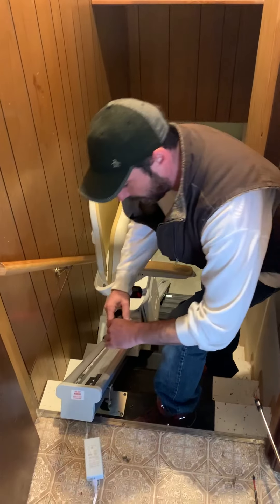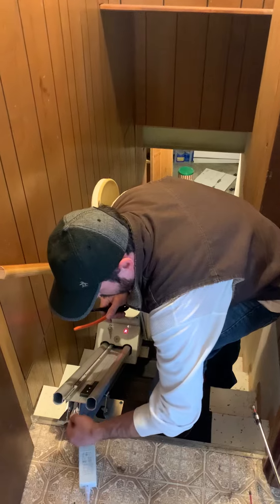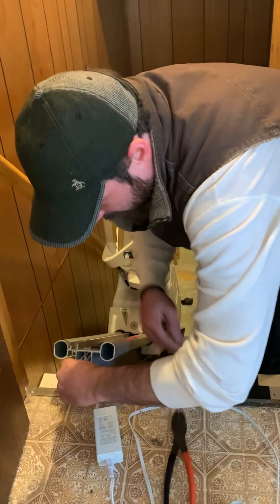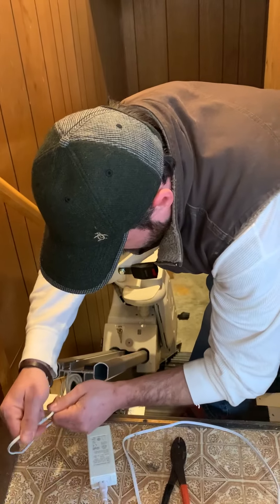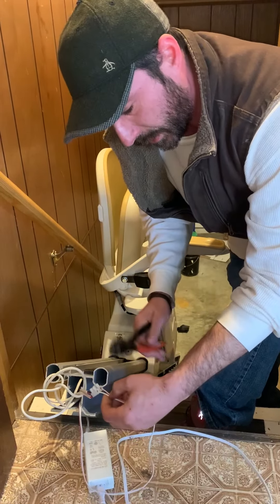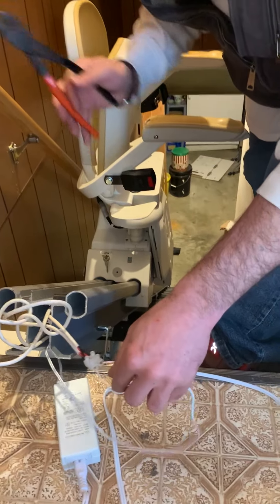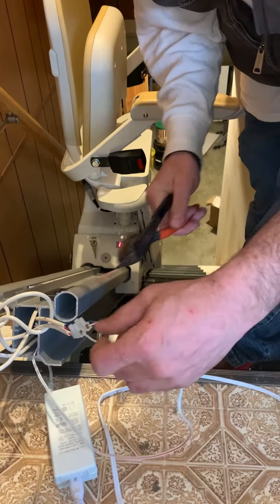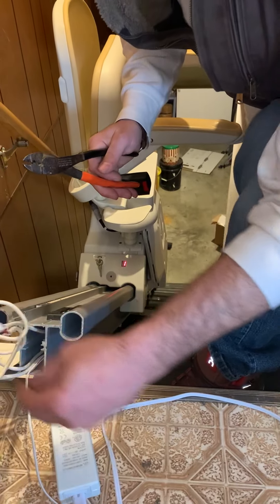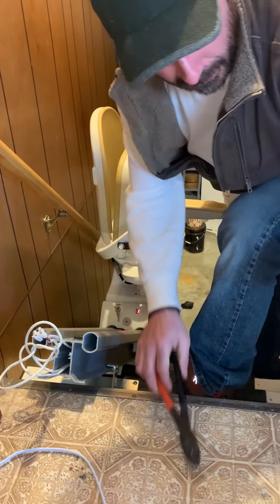This cover pops right off. There's a couple wires. You want to unplug this first. Unplug that. Pull these wires out of here. They are color coded. This model is DC current, which does have a color coding. But we can just cut that. This pulls right out the bottom. That's unplugged out of here.